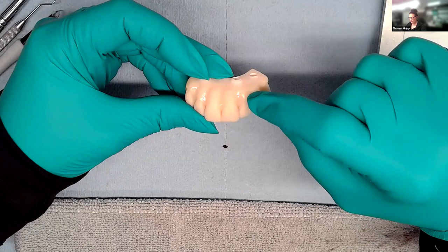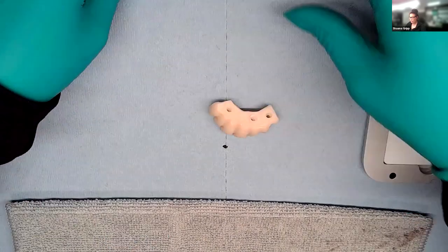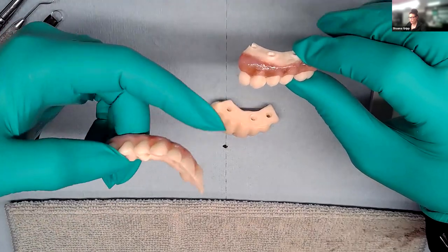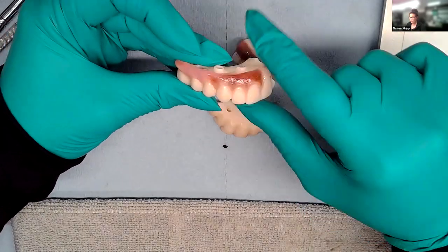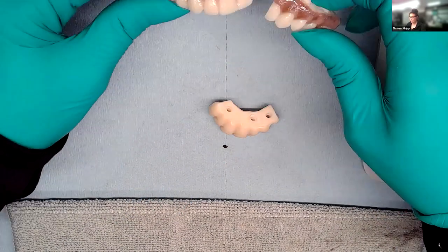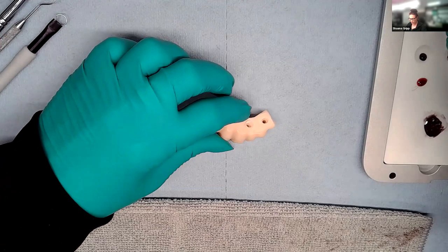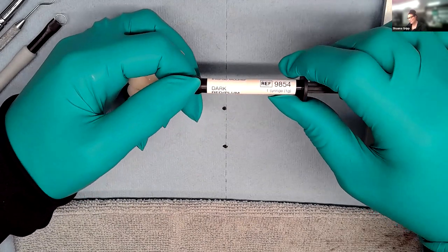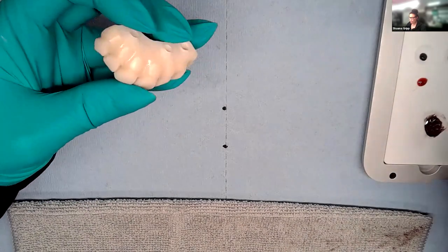With this piece already bonded, today she'll do an in-between of two ethnic tissue shades — ethnic tissue is difficult. You can have a lot of darker purple undertones all over, or light pink with hyperpigmentation in certain places that you characterize. She'll do an in-between and show her general workflow for every single hybrid she does. Her go-to is the dark red plum shade, which she'll be buying tons of — it's her favorite.